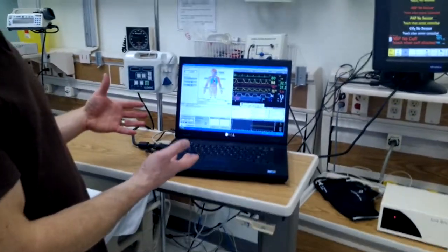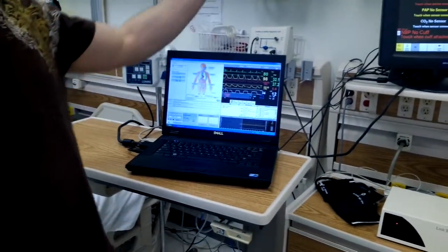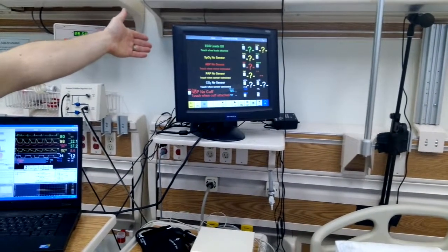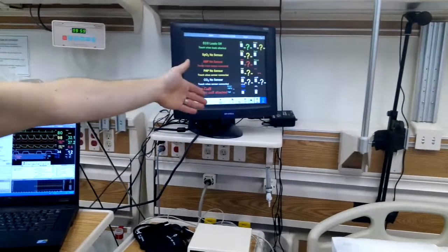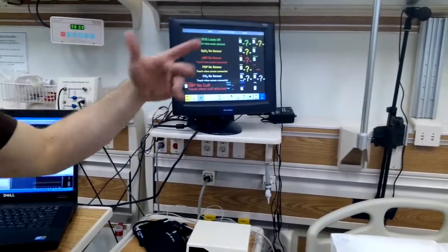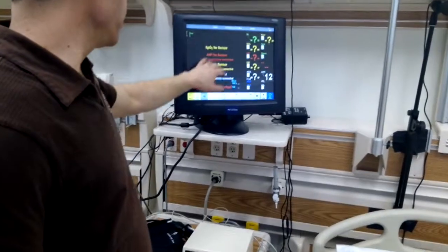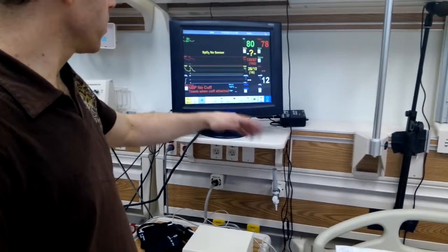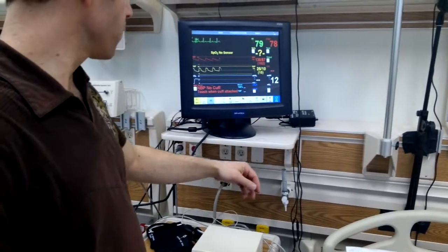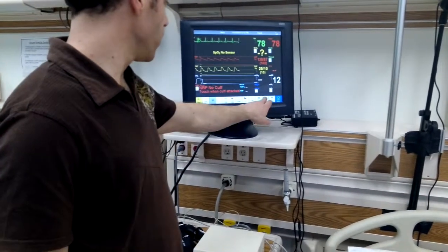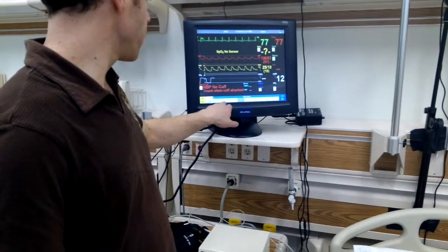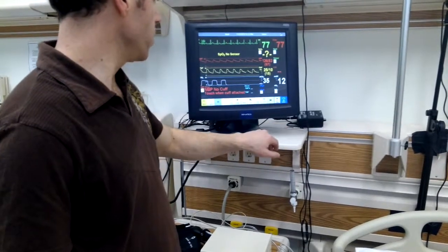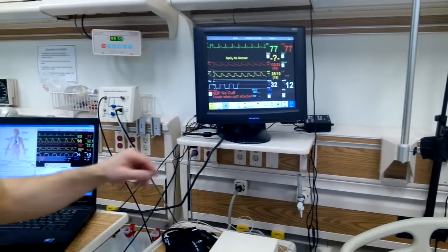Now we have it up and running. You can see that the patient monitor also automatically started. If the monitor was off, it would have to be turned on. This monitor is a touchscreen. So to start it up, we touch the different sensors. And we can turn the audio off that way. Go back to main screen. And that's how that one runs.